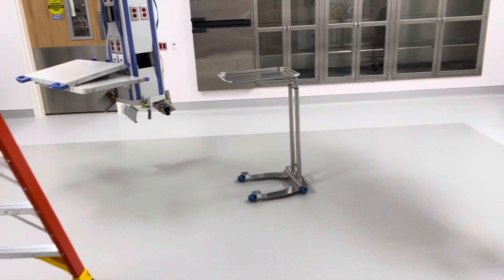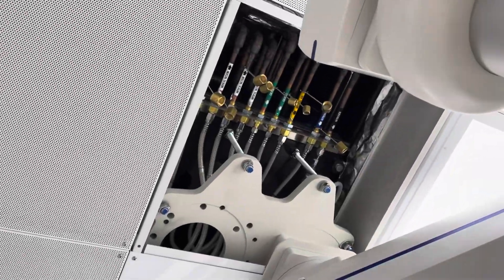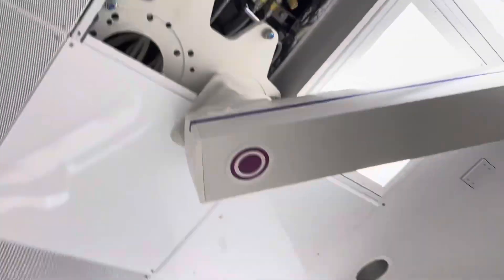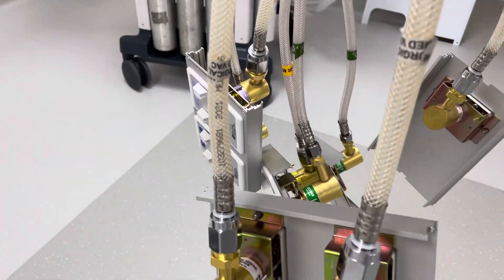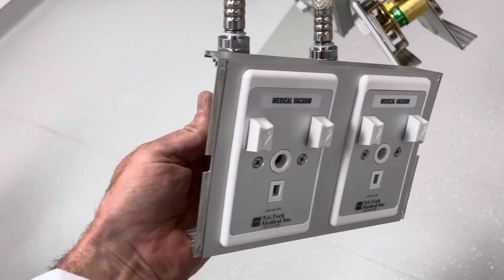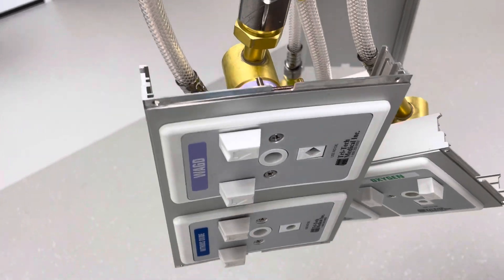Alright, we are under test and we got all the fittings crimped up there. We got all crimps down here, all the outlets are under vacuum pressure. There's your oxygen and your nitrous oxide.